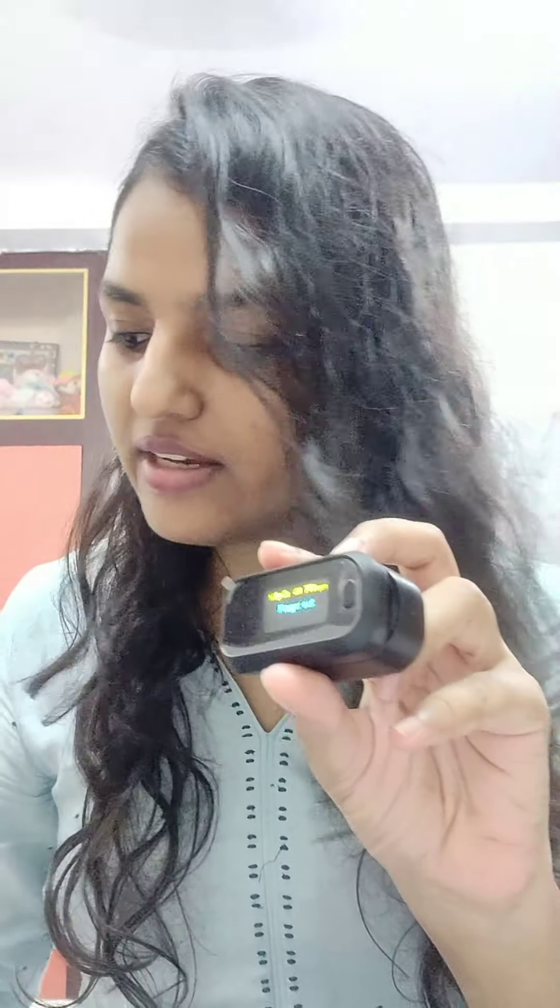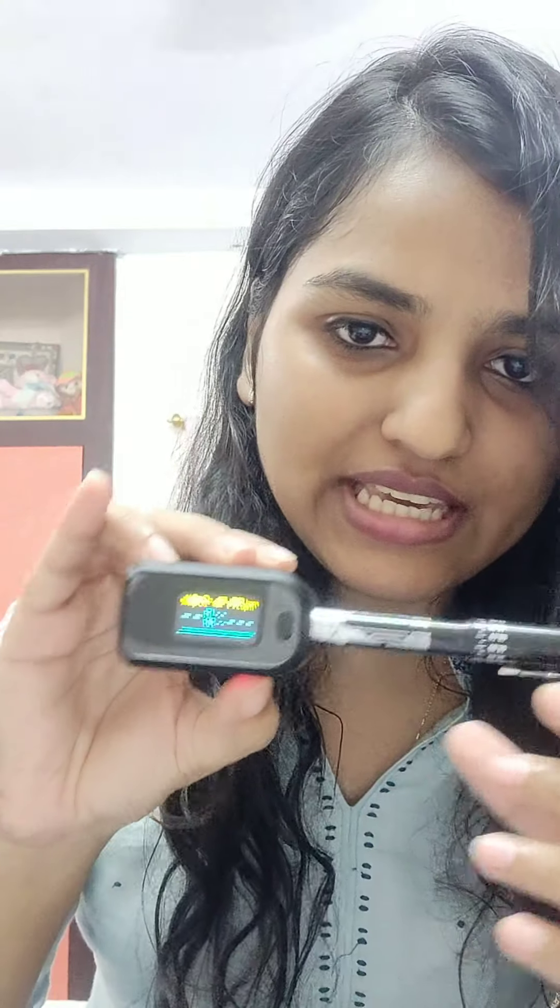Now when I am taking out my finger, it is saying finger out. And now I am going to check my pen to see if it will show any reading. I put this pen inside and, as you can see, it is not showing any reading. So this is how it is supposed to be — if we take out our finger and put something that is non-living, then there is no reading. After switching this, it is not reading anything.